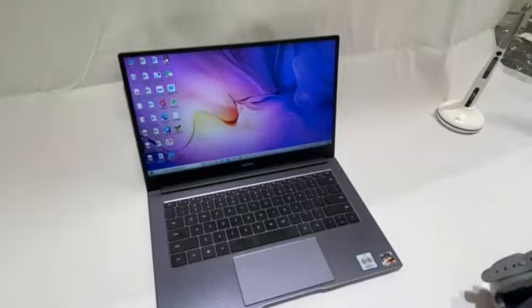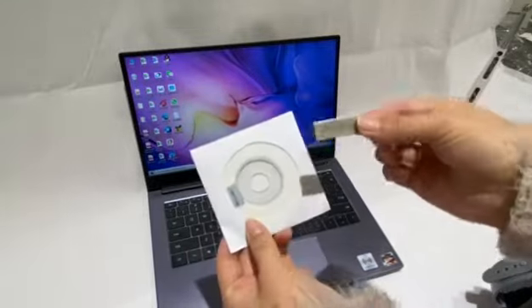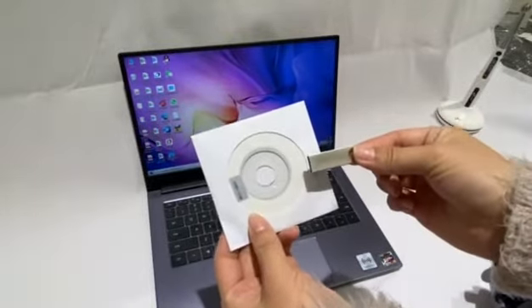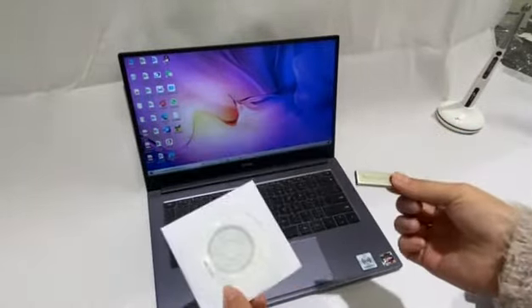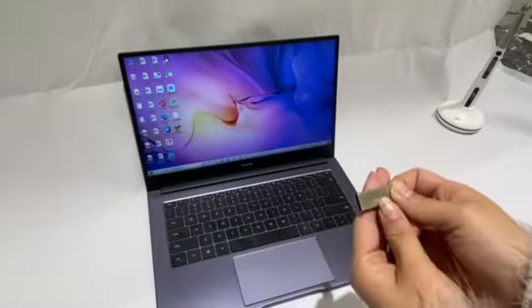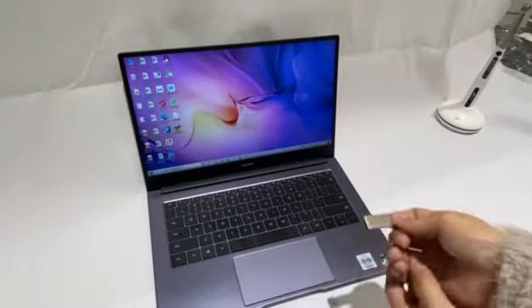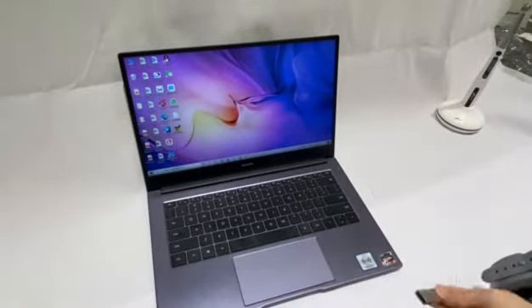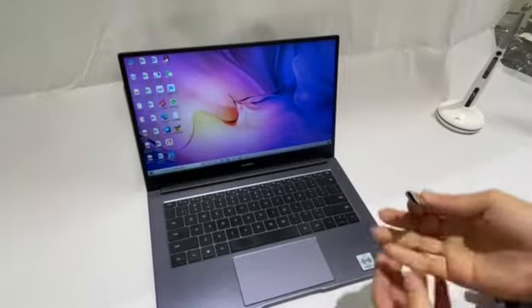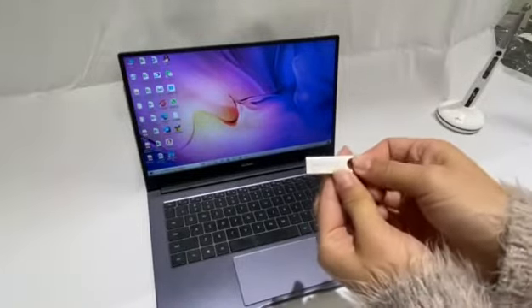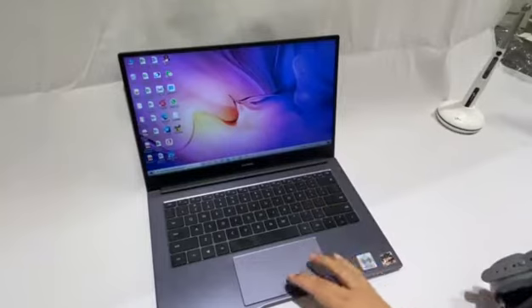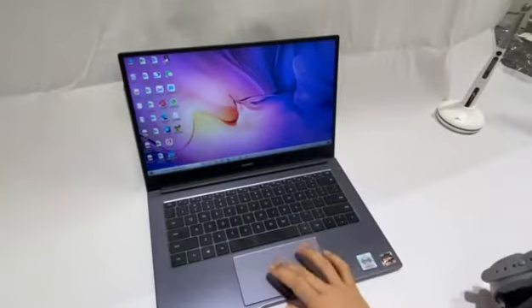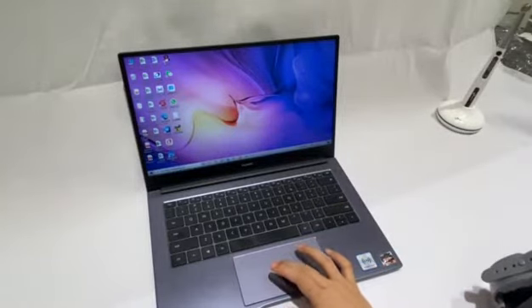Okay, so I'm going to show you how the Nanopix sensor works. You can find these two in the package: flash driver and a CD. Then you can install the software to your laptop, tablet, or PC to use with them. In my laptop, you can find the pre-installed software.